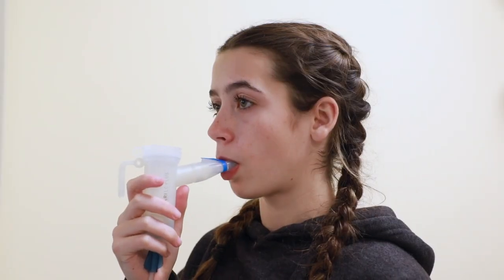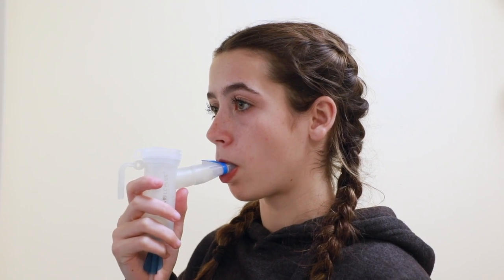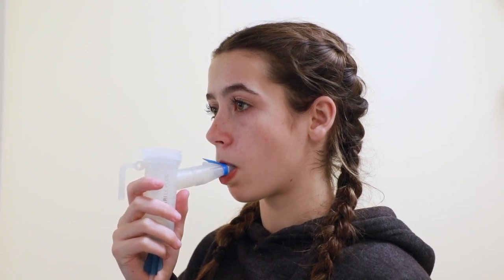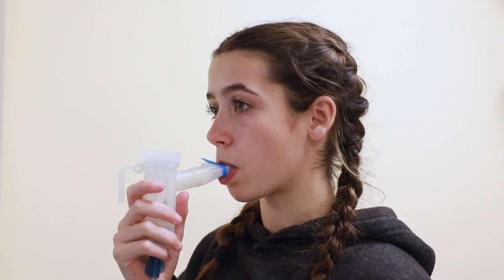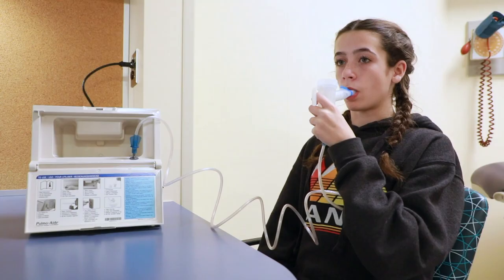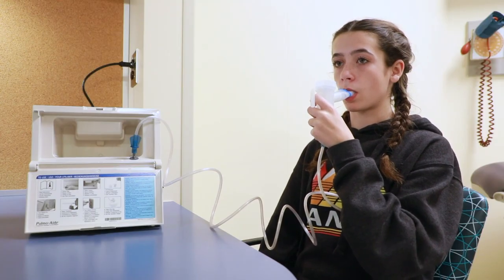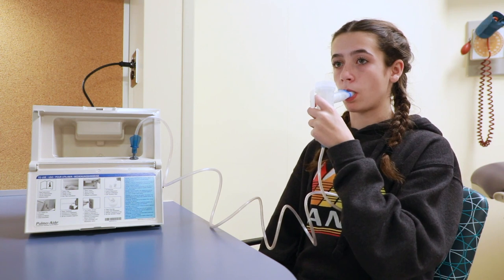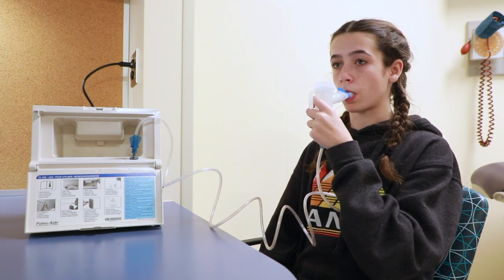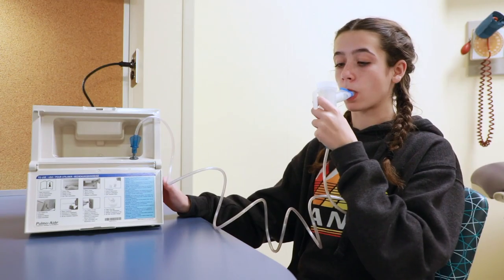When taking the medication, place the mouthpiece between your teeth and over your tongue, then close your lips around it. Make sure you are sitting in a supported position so that your breathing can be comfortable and deep. Now turn the compressor on.